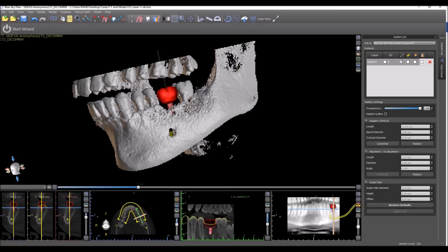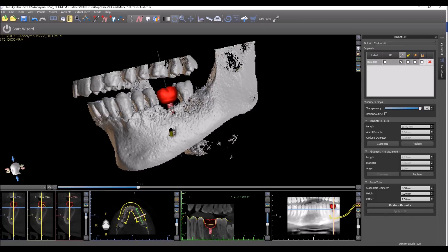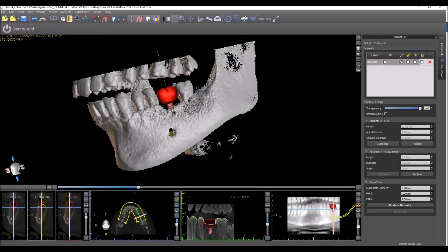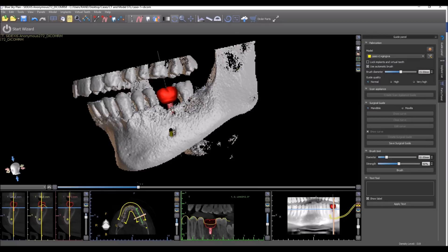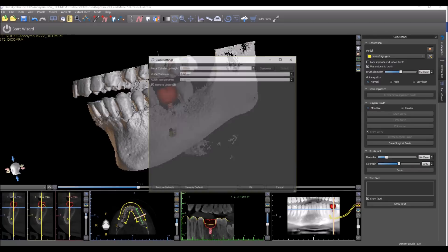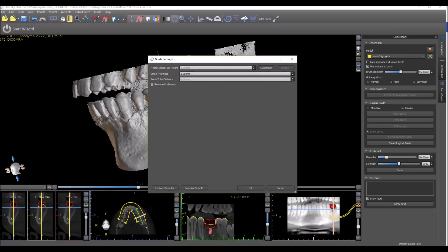The user that's not using either one of those kits should choose the custom kit option. Now they could go ahead and enter the numbers and the data for the guide hole diameter, height, and offset to accommodate any metal cylinder for any guided surgical kit. The same is true when we go to the guide panel and look at the settings for the surgical guide. The information regarding the metal cylinder lip height is dependent on which guided surgical kit is being used and of course it could be edited and customized on a by-need basis.